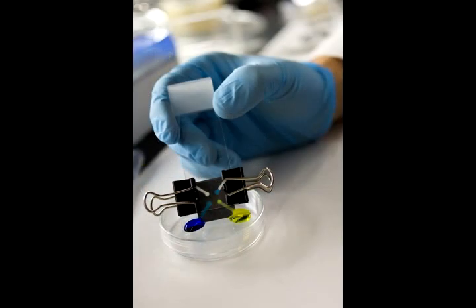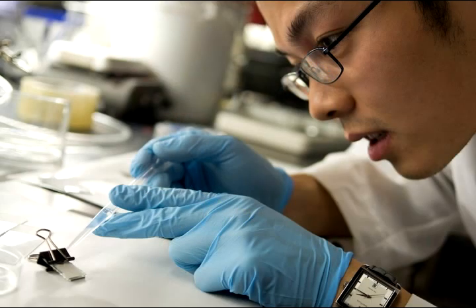And also, depending on the design, you can create complex tests that are the result of the vertical connections between different markers embedded at different layers. So you put in your sample, and it might be testing for three or four different things, or it might be doing four or five tests for the same thing, so that you have a certain degree of redundancy.